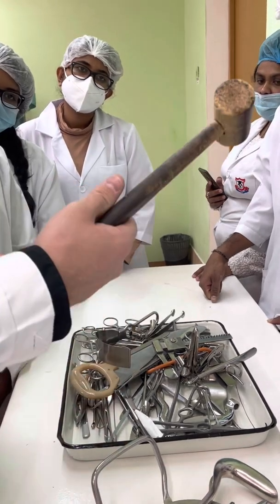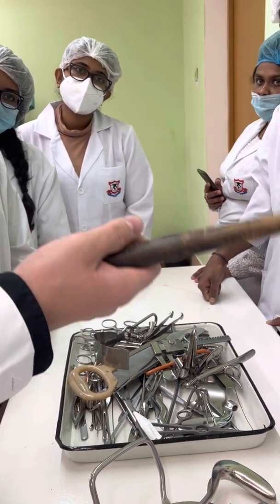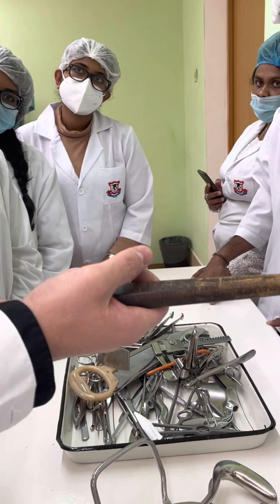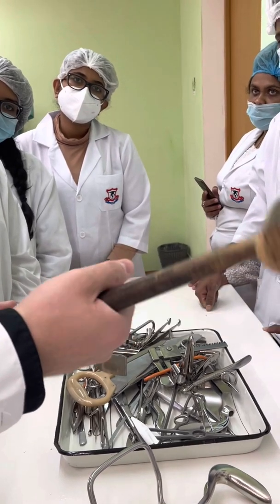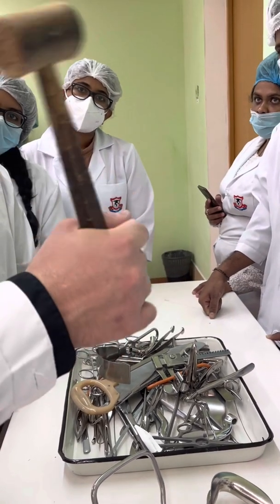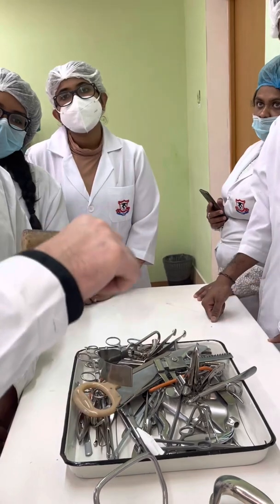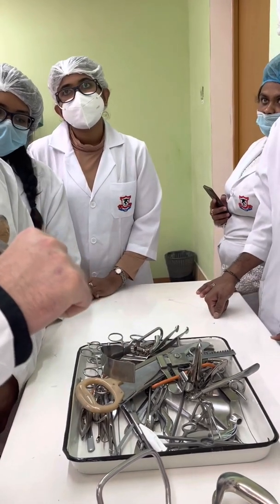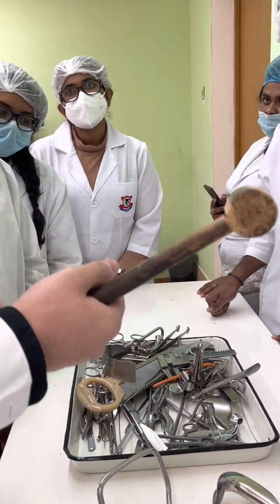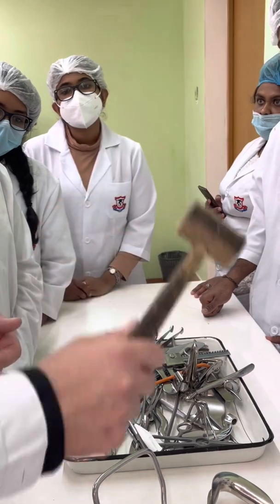Surgical hammer. Used for operations on bones, which you will study in a later class. That's why, except for operations on bones such as osteotomy, we also use it — studied in a previous semester — for arthrotomy, when we need a hammer.